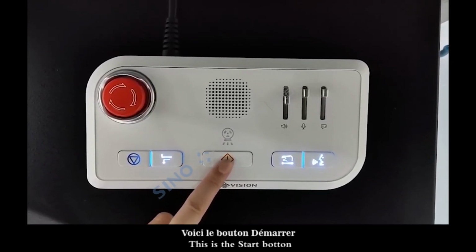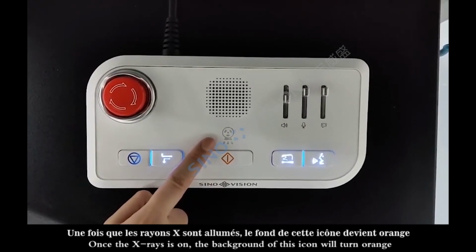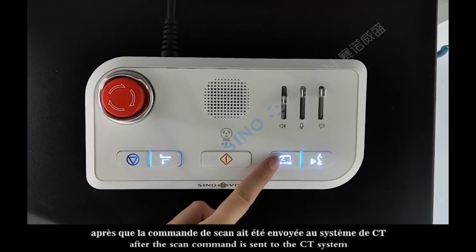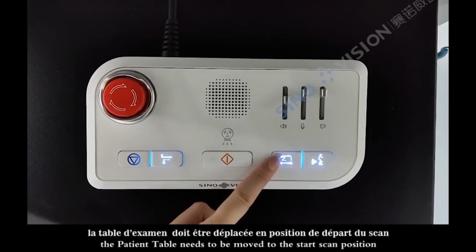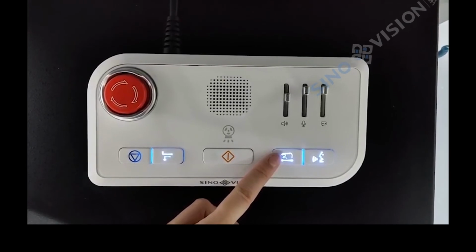This is the start button. Once the X-rays are on, the background of this icon will turn orange. This is the move button. After the scan command is sent to the CT system, the patient table needs to be moved to the start scan position. This button is used to confirm the movement.